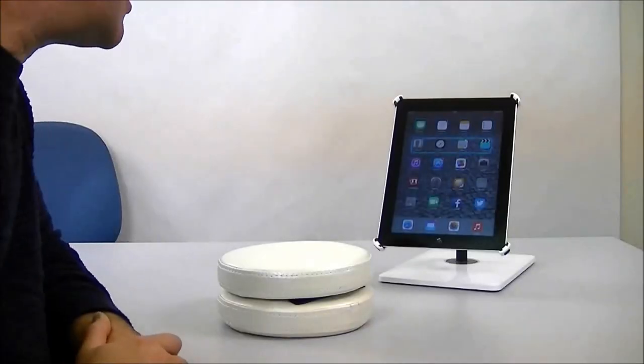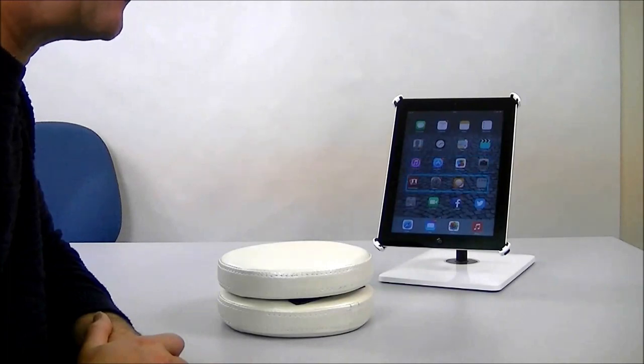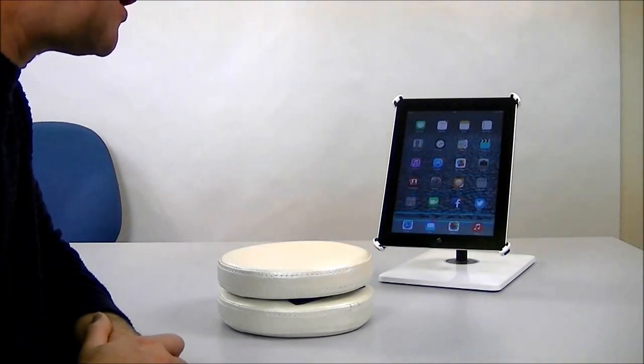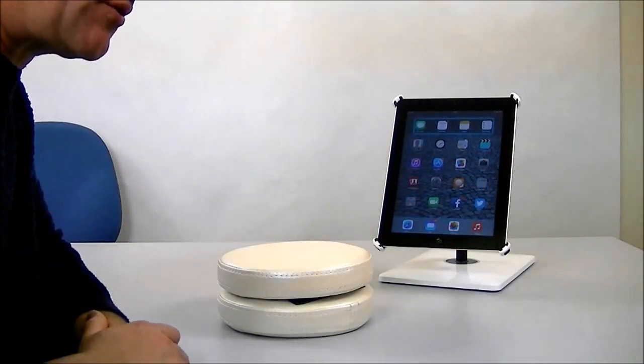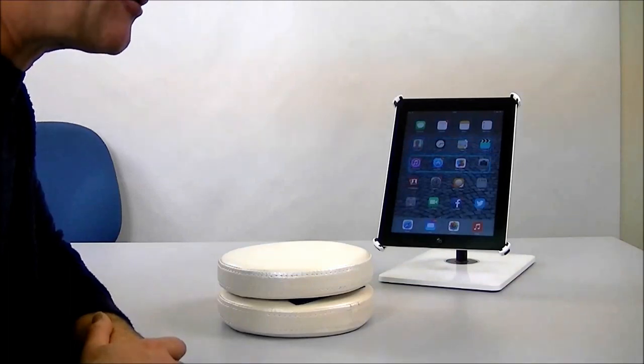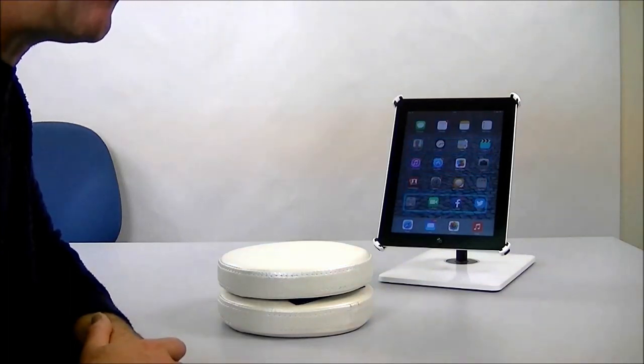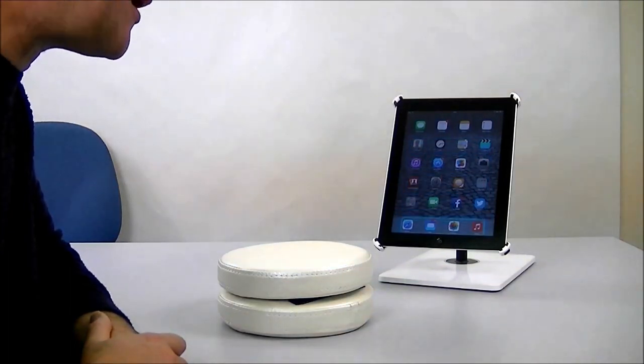Tap mode can be used for all the other functions I've demonstrated in previous videos. It can be made to switch on a battery powered toy for a short while or turn on a mains appliance.